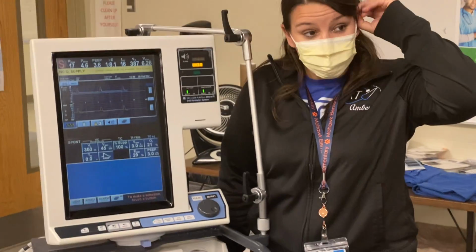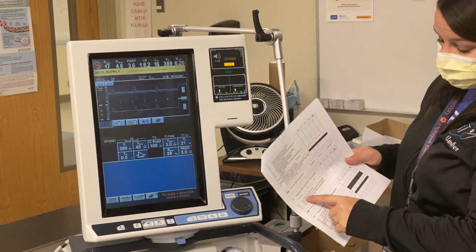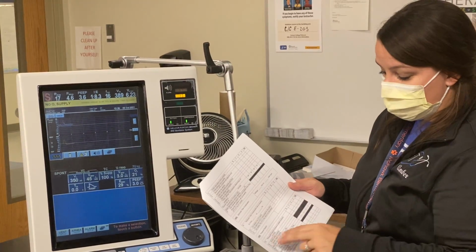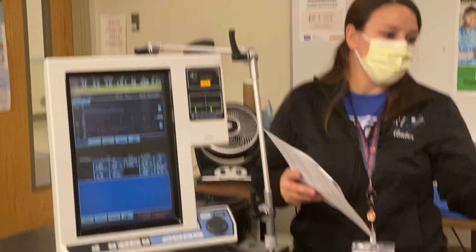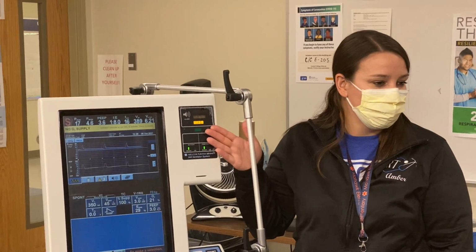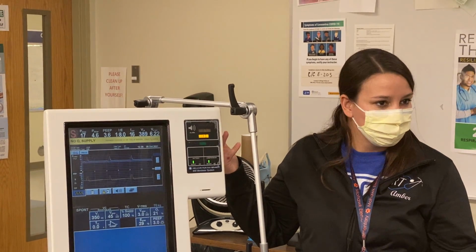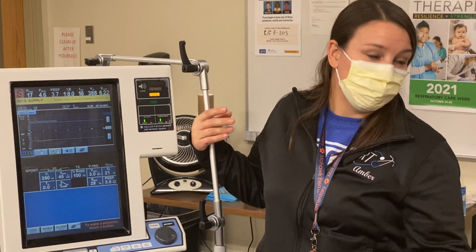Okay, so the next step from here, when you're maxed out on your tube compensation, what we will ask you is, explain how tube compensation works. Is it appropriate for this patient? No, it's not. And then explain when you would decrease tube compensation. Why would you decrease tube compensation? Why would you want to take any support away from airway resistance? You wouldn't.